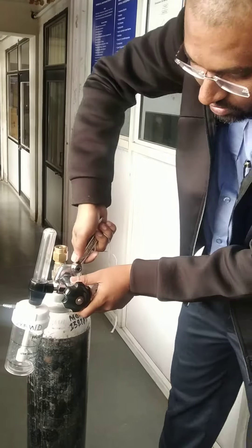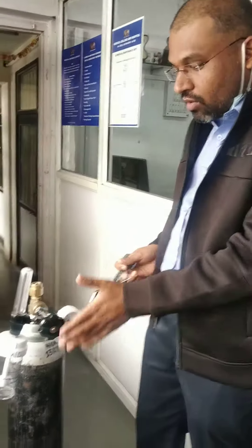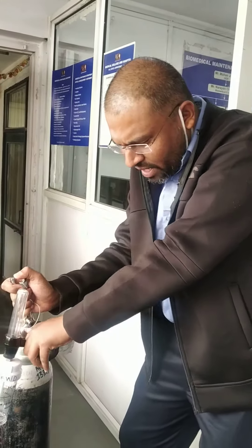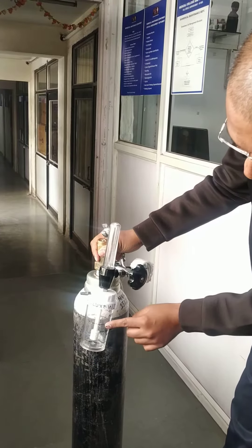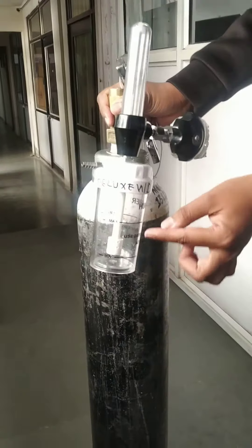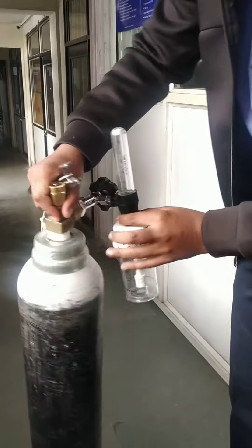Open the knob and remove the empty cylinder. Take the new cylinder, connect it, and tighten it as much as you can. If you require water in the humidifier, fill it with water, start the oxygen, and here you can see the marking.